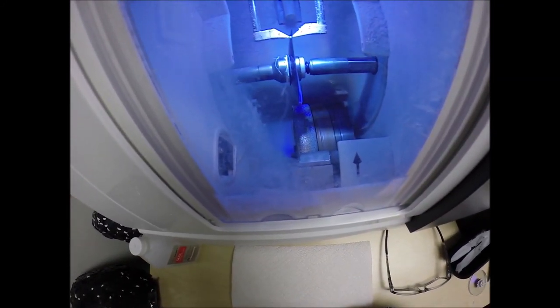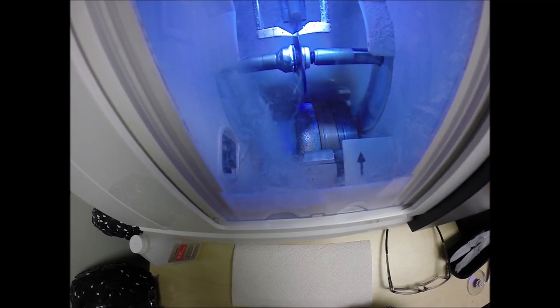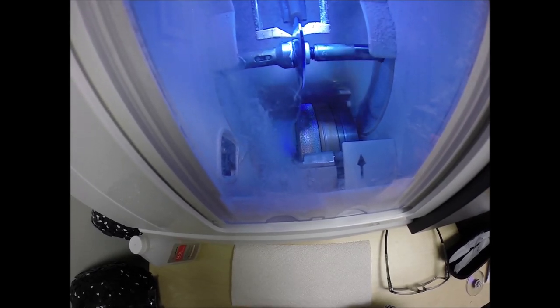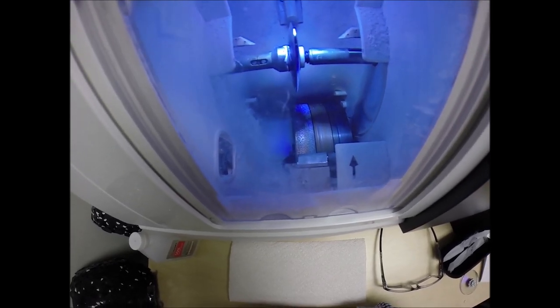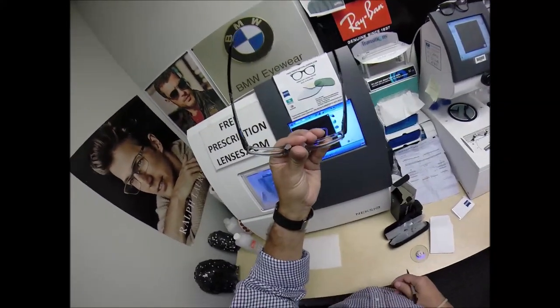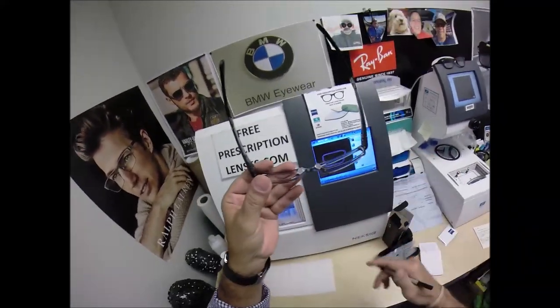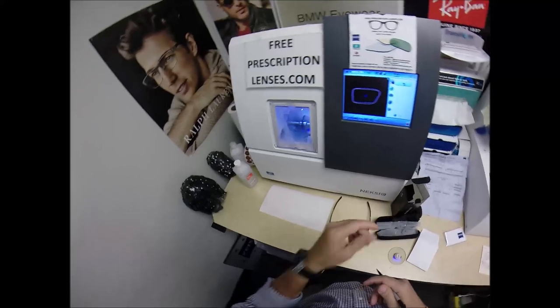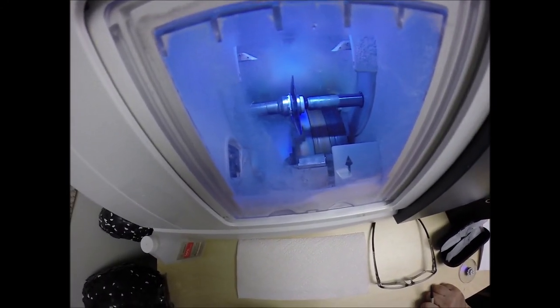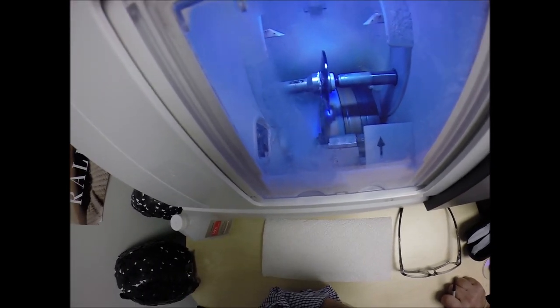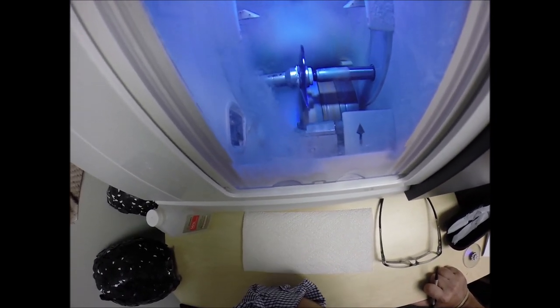And then the old carpenter saying measure twice, cut once is measuring the thickness of the lens at every point to know exactly and precisely where to place the bevel so you have the least amount of edge thickness showing of which you will have none, if any. That's right. I said none. And then I said, if any, because you have two separate powers in your lenses. So we'll just have to see. Now the light you see flickering in the background is water. That's there to catch the optical sawdust as it comes off the cutting wheel.